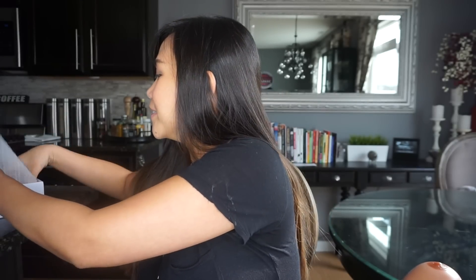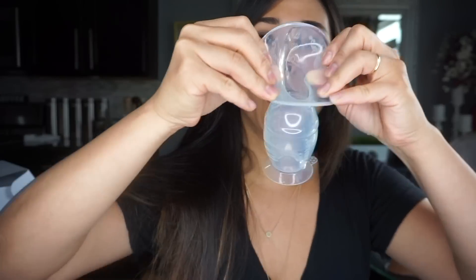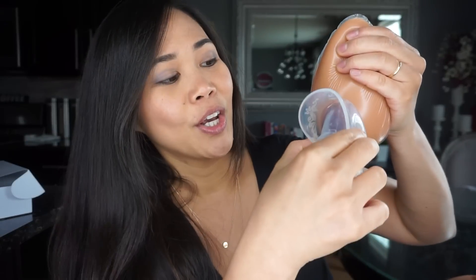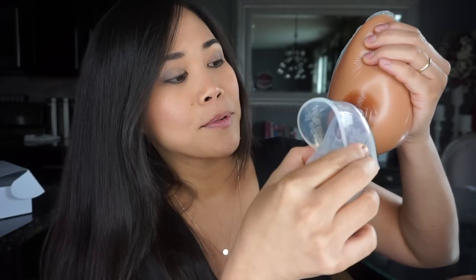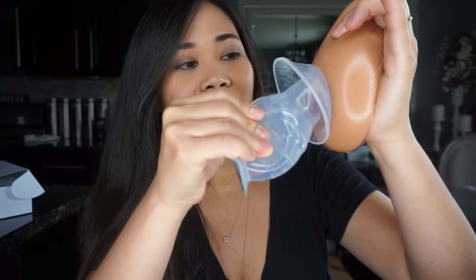Now, when I found this great technique, this is what you do. I set the boob in here — actually, I have two boobs here because it comes in a set. Anyway, what you do is you go like this — you go like that, you take the boob, you kind of fold the top, you squeeze on the bottom, and you let go, and this suctions.